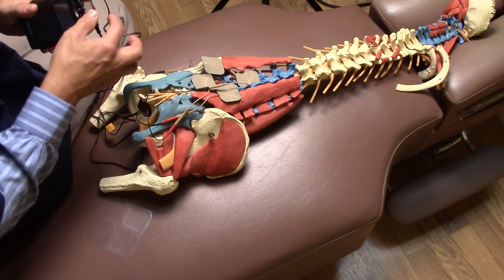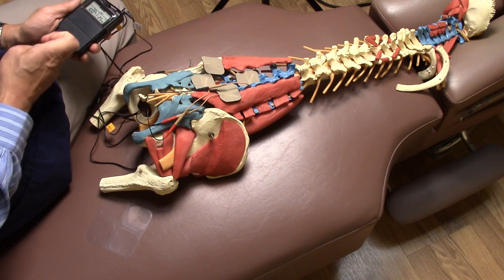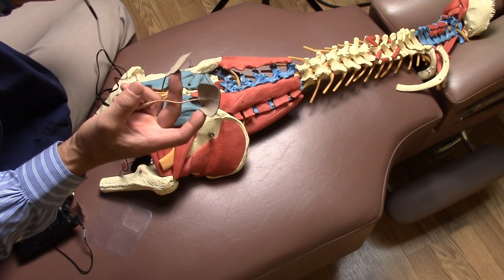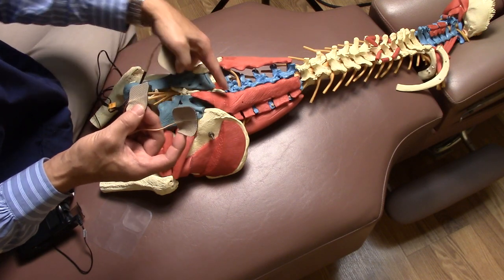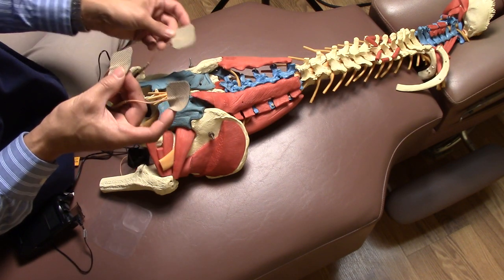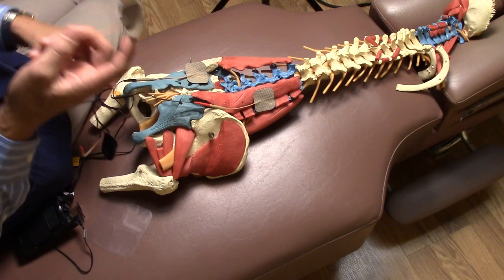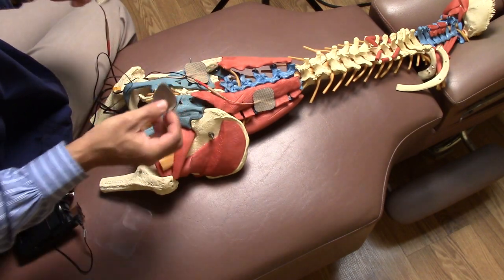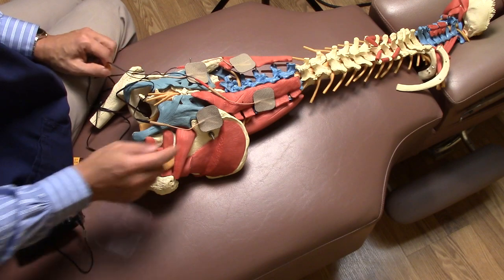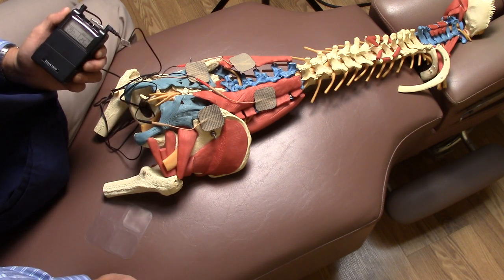Since you have four electrodes, you have to use both channels. Turn it on and see what it feels like — evaluate it after a couple of sessions or a couple of minutes and make necessary adjustments. You can also try a crossing X pattern with the electrodes. If your pain is in one spot and you're not sure where the offending tissue is coming from, position the electrodes around it so the electrical currents connect in an X. Place two from one channel in one diagonal and the other two in the other diagonal. You can play with the modulation to see which combination works best for relieving the pain.